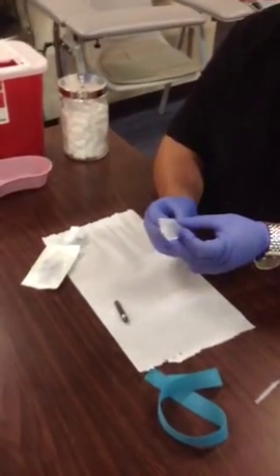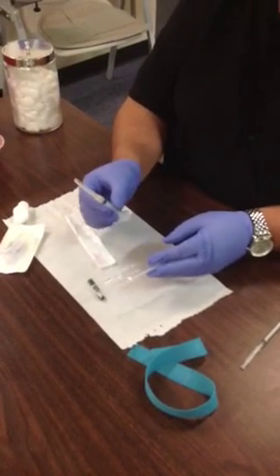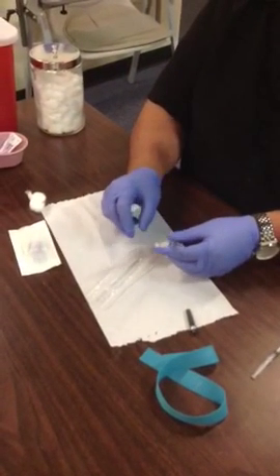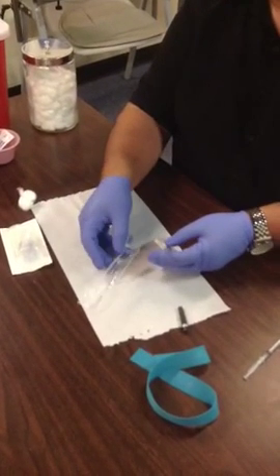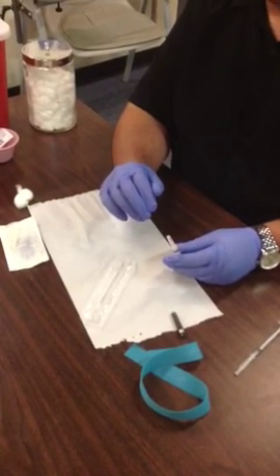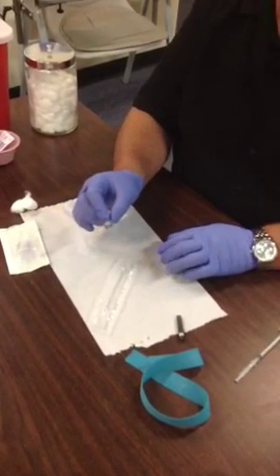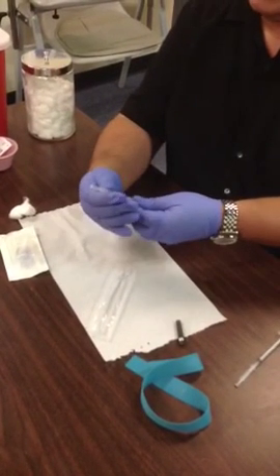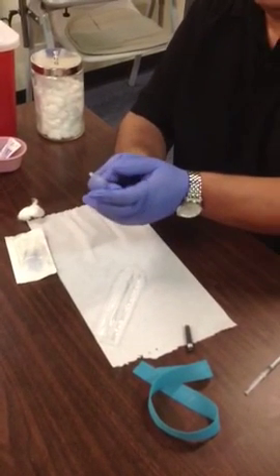Let's use the hypodermic needle. When you open up a hypodermic needle, it can be a little tricky. Take the top half of the wrapping and leave the bottom portion of the wrapper on the table — it's considered sterile, and if you need to place your syringe back in there, it's a clean area, whereas on the outside it's not sterile. Always make sure to tighten the cap, which also tightens the needle, and then take it off safely.